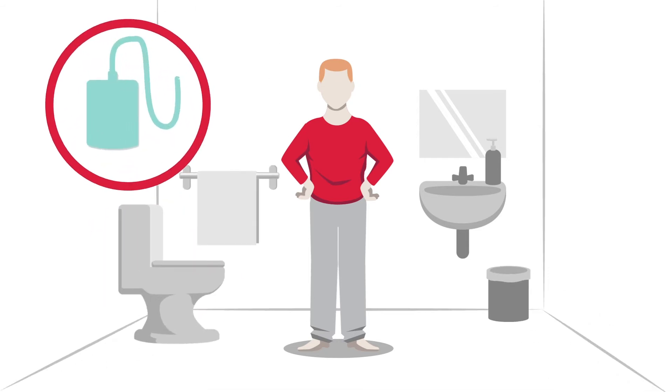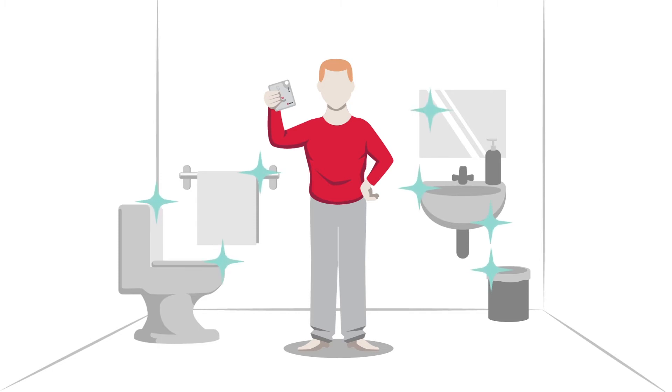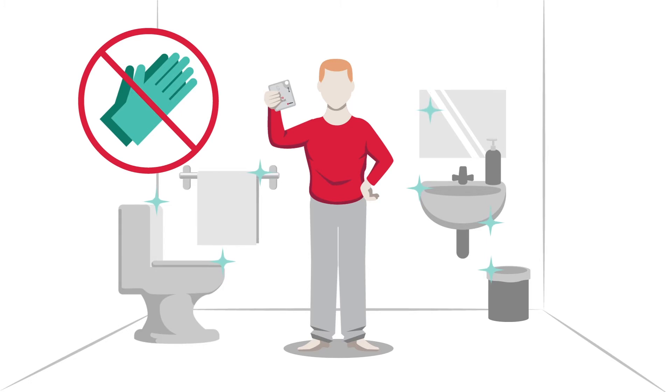A urinal or appropriate collection container, and last but not least, your Vapro Pocket Catheter. It is recommended to perform this handling in a clean environment. Good to know: gloves are not really necessary in home situations when using Vapro Pocket Catheter.